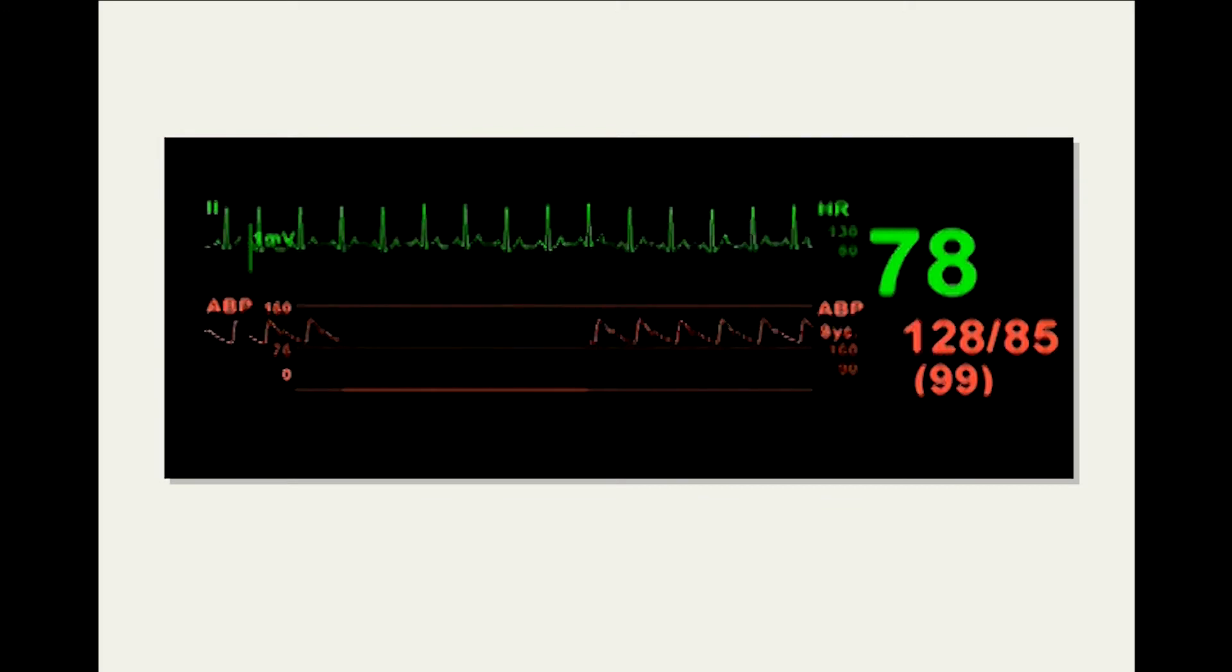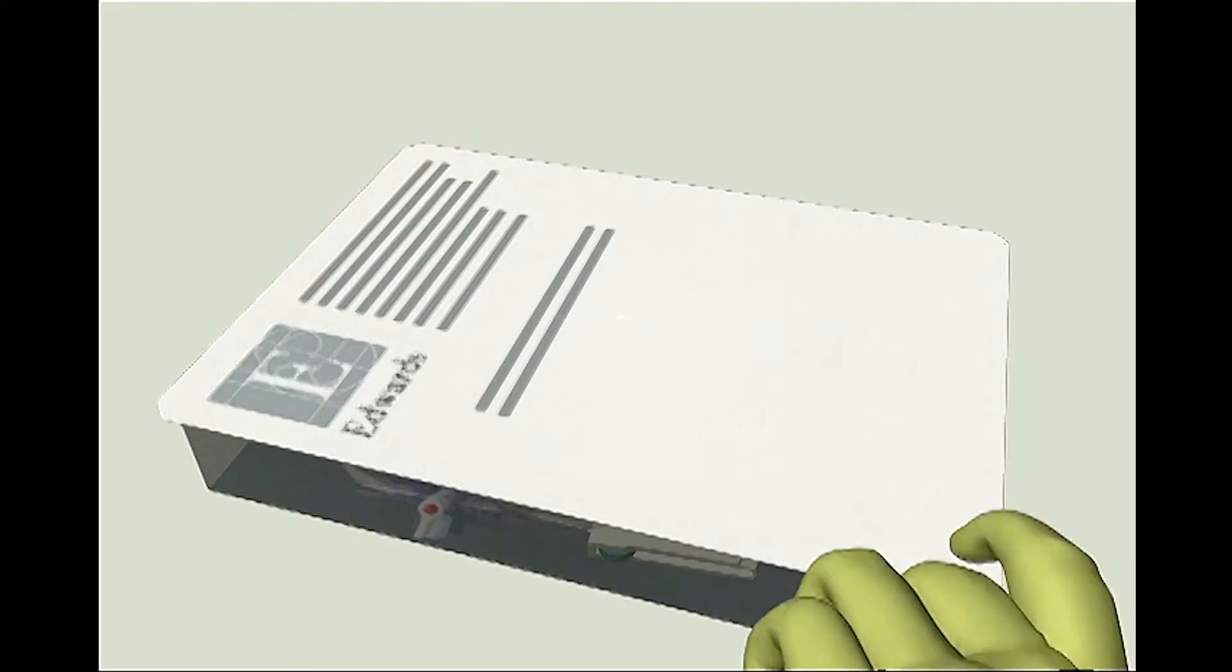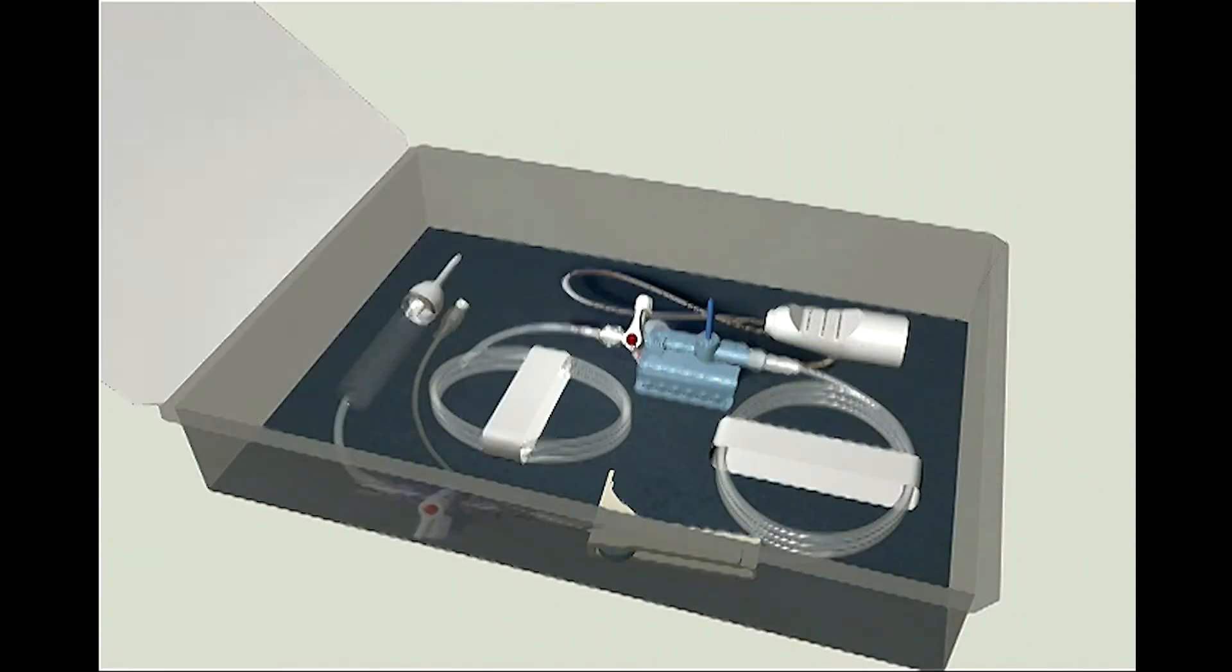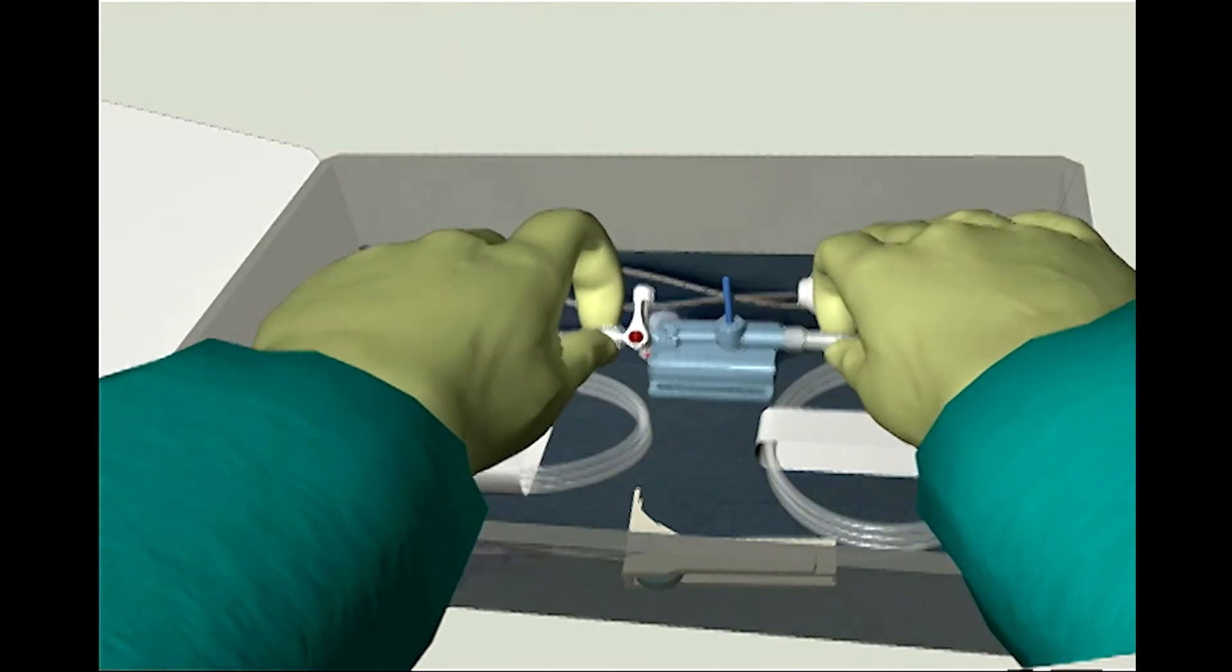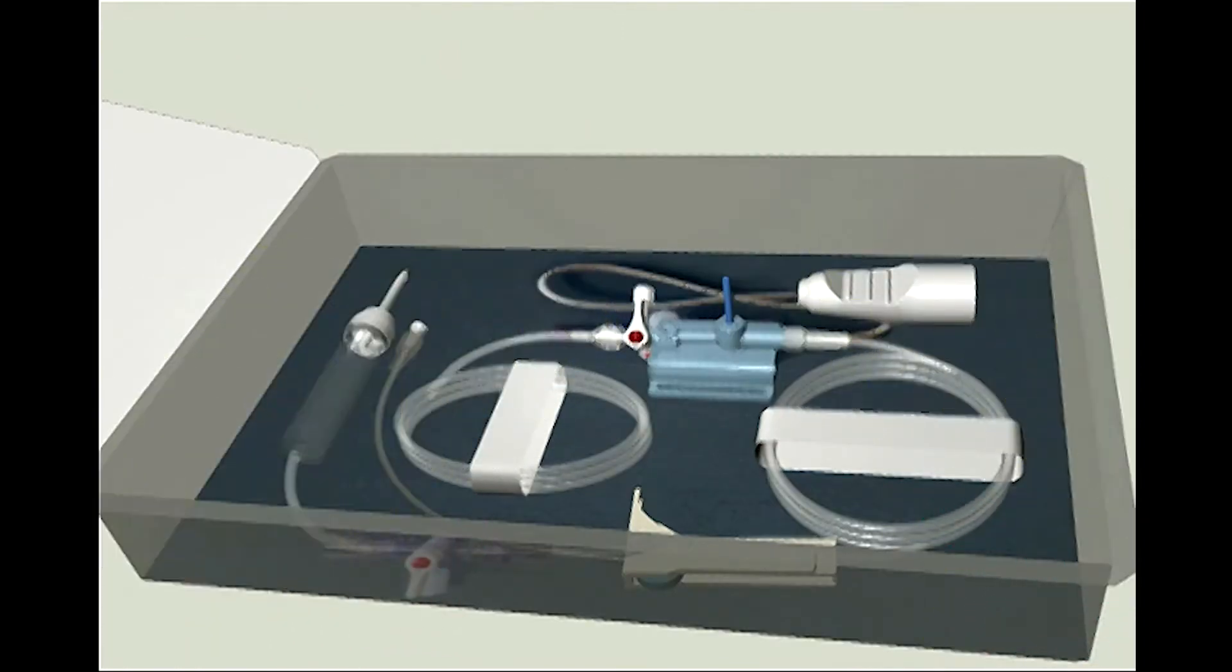Prepare the TruWave Transducer using the following six steps. Step 1: Using aseptic technique, remove the transducer and kit from the sterile packaging and ensure all connections are secure.